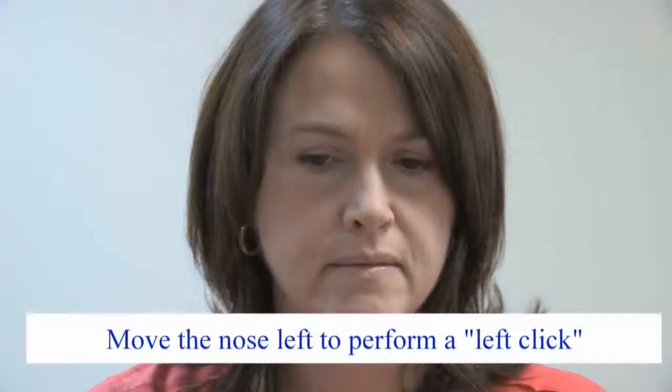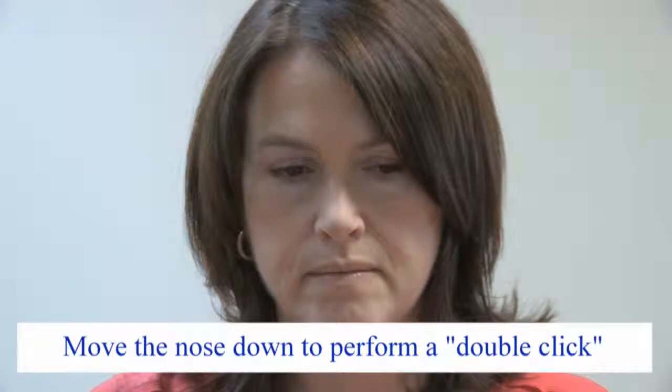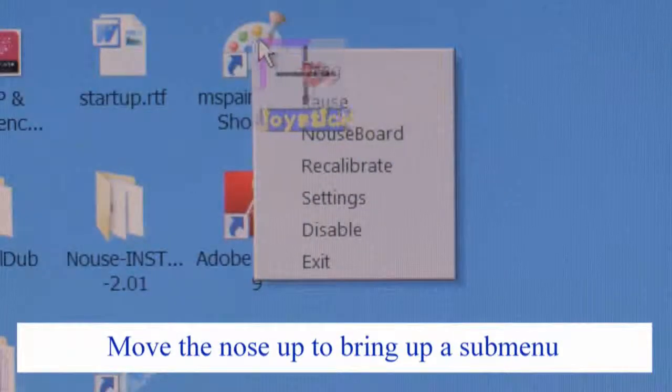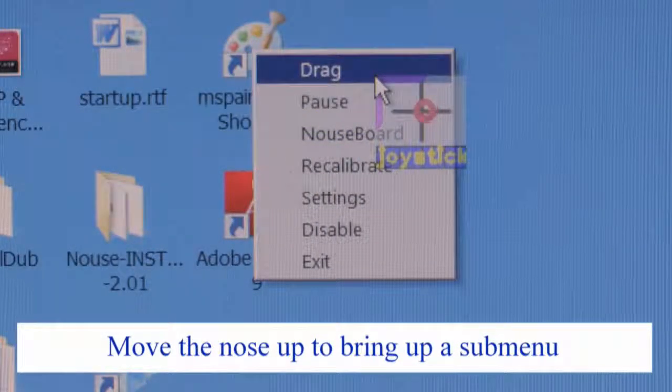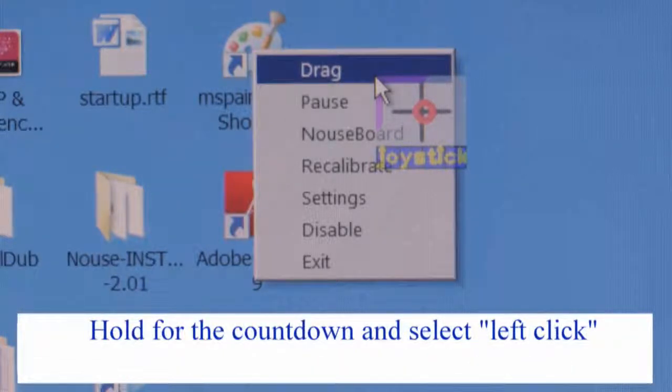1. Move the nose left in order to perform a left click. 2. Move the nose right in order to perform a right click. 3. Move the nose down in order to perform a double click. And 4. Move the nose up in order to bring up a submenu of other actions. These include drag, pause, Nouse board, recalibrate, settings, disable, and exit. The user can select the desired action from the submenu by moving the Nouse cursor up or down along the menu options, holding for the countdown, and then selecting the left click.